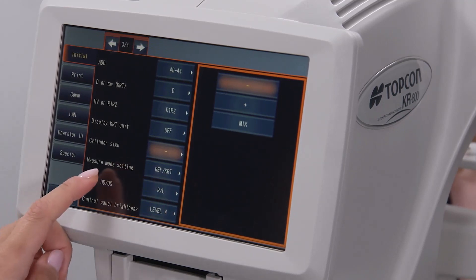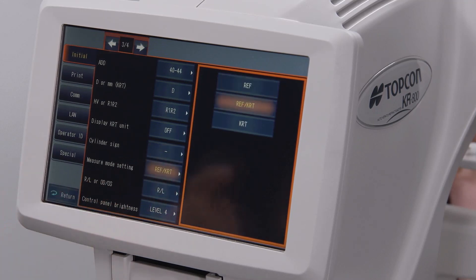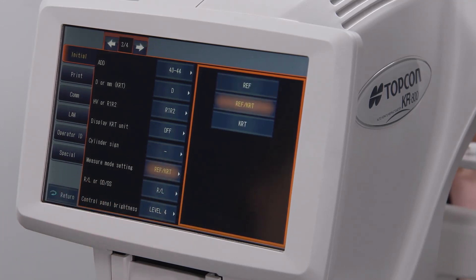Measure mode setting determines whether the device will default to capturing both an autorefraction and keratometry, or just one or the other for each new patient.